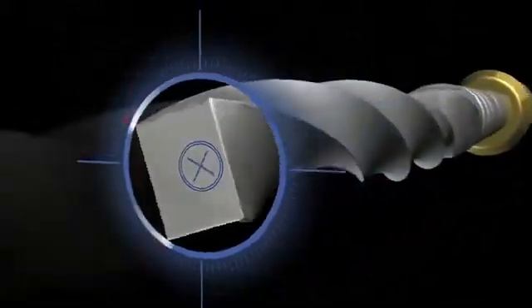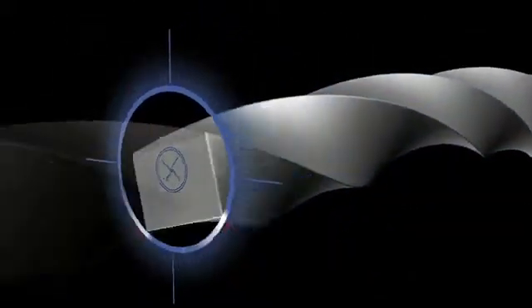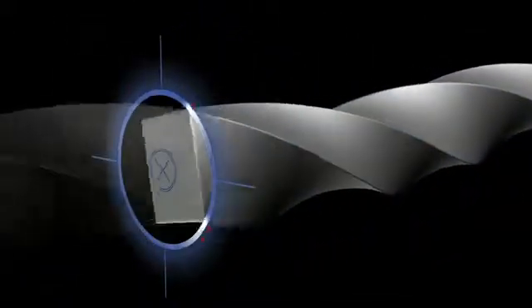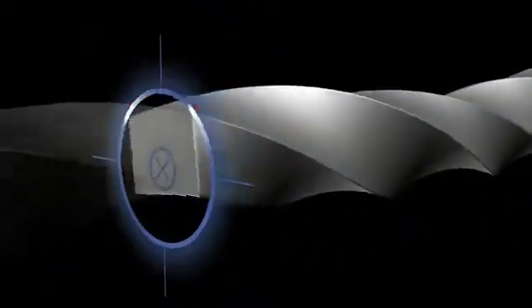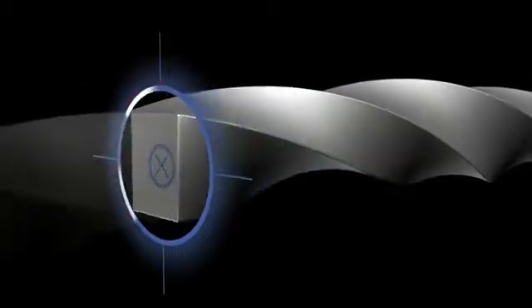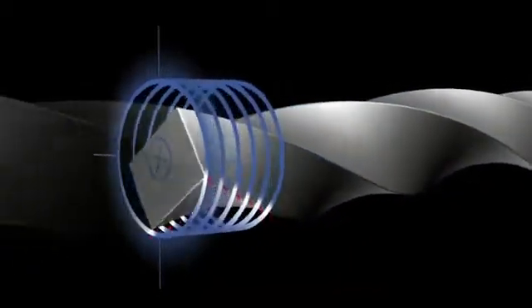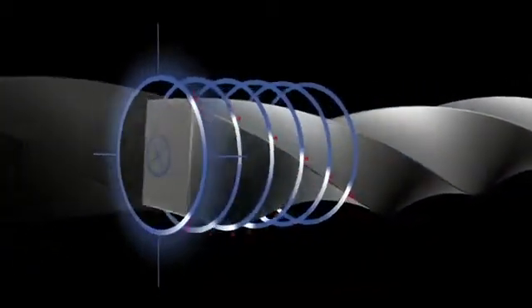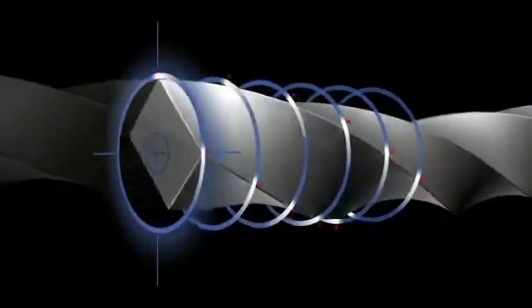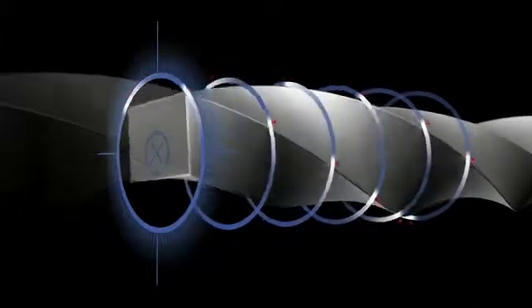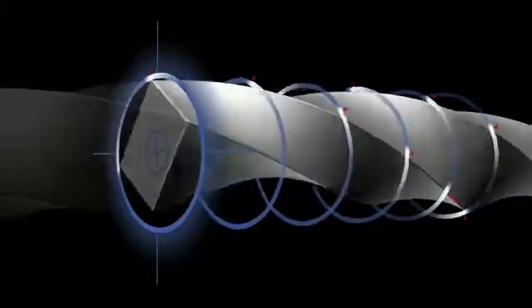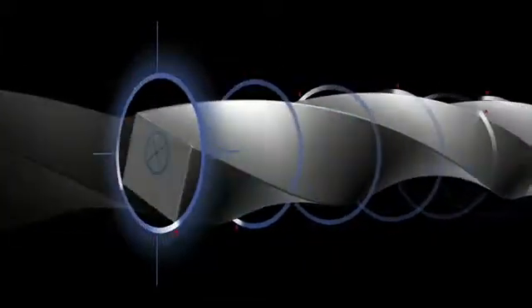This feature serves to limit the engagement between the file and dentin. Over the active portion of the file, there is limited contact at any given cross-section as only two cutting points are engaged.